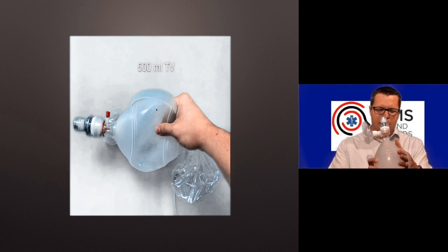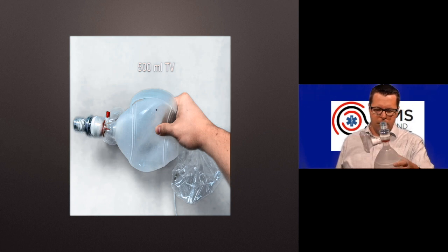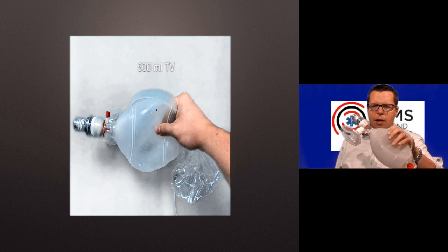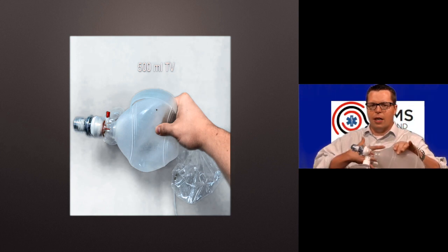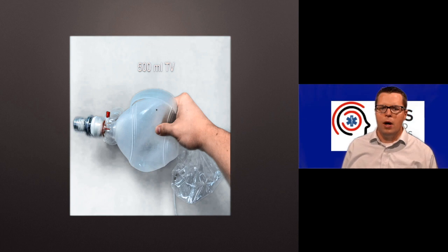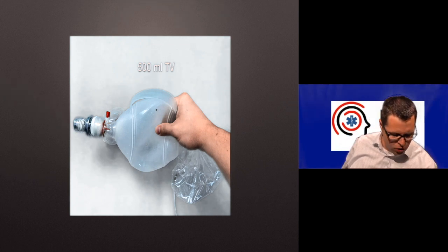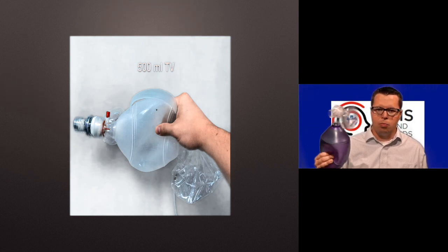If you were going to use this thing on the side because your hand is small or the bag's slippery or something like that, then you don't necessarily have to squeeze the entire thing every time. Remember, use a couple of fingers and just squeeze enough to get chest rise, and that's probably about 500 mLs of tidal volume. Now, I've taken a bag and squeezed it into a mannequin that senses how much volume we're putting in each time, enough to know about how much 500 mLs is for me, and it's about like that. I've just practiced with it.